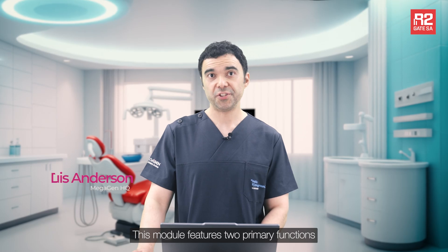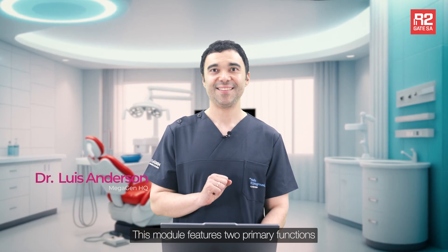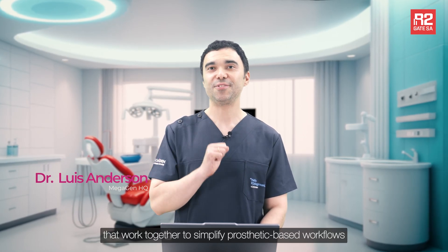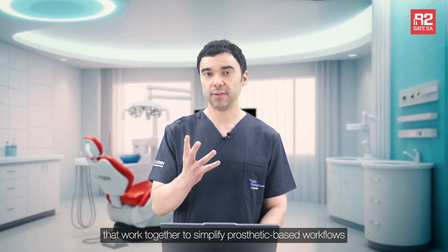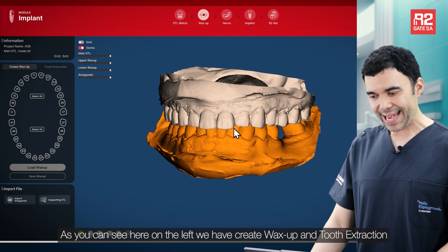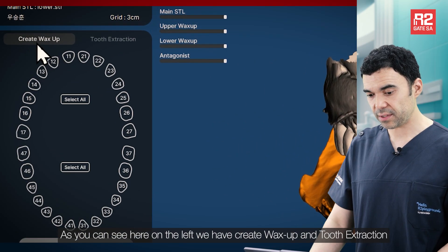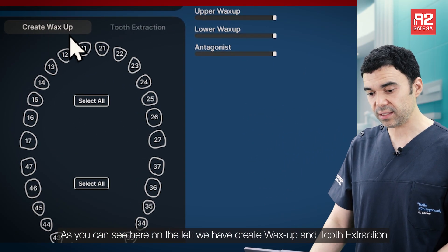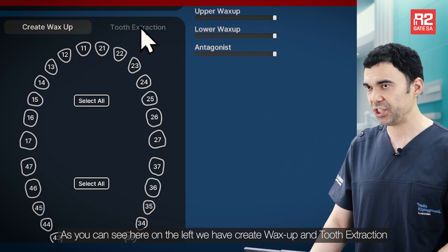This module features two primary functions that work together to simplify prosthetic-based workflows. As you can see here on the left, we have wax-up creation and tooth extraction.